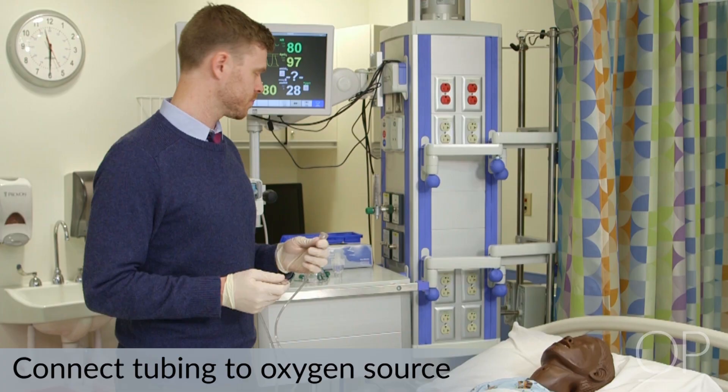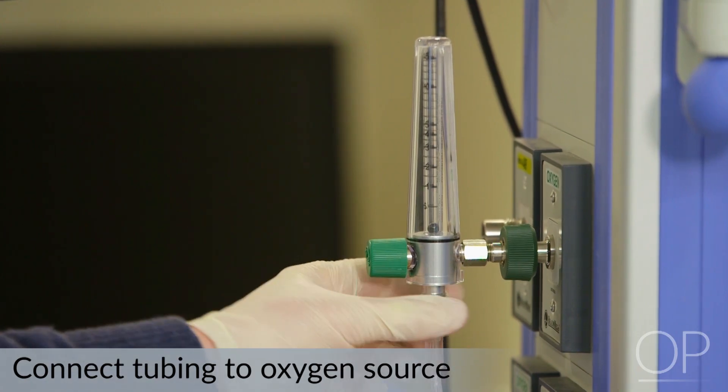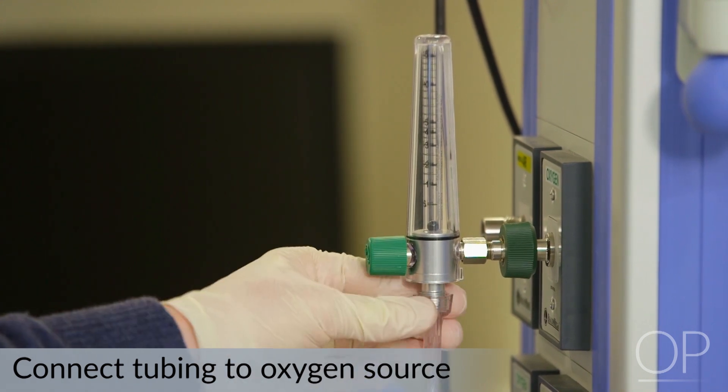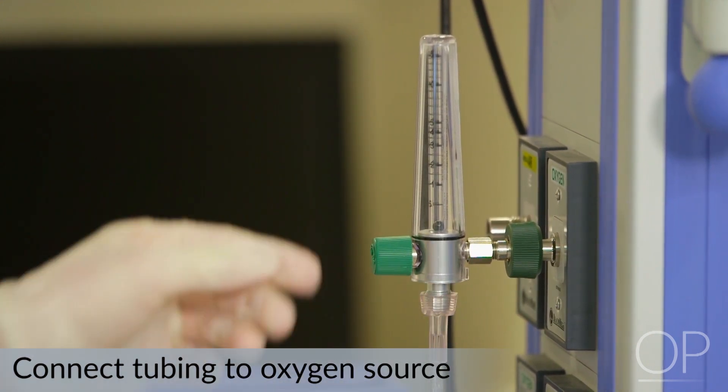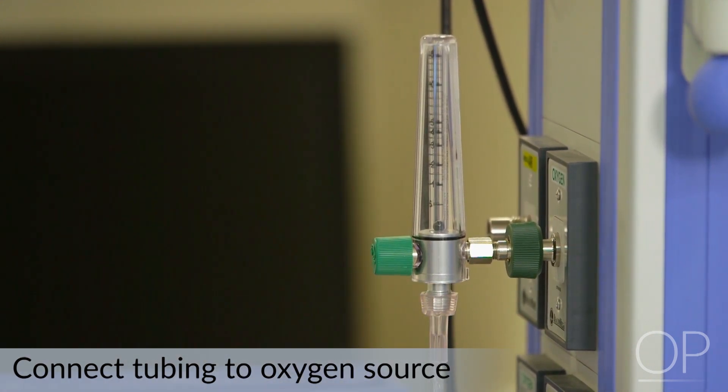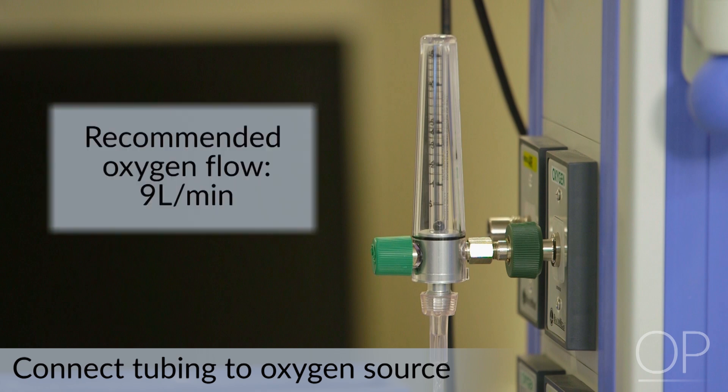Next, I'm going to connect the nebulizer to our gas source using oxygen tubing. It should be noted that in order to adequately power jet nebulizers, a specific gas fluid flow is required for this device. The manufacturer in this case recommends 9 liters per minute.